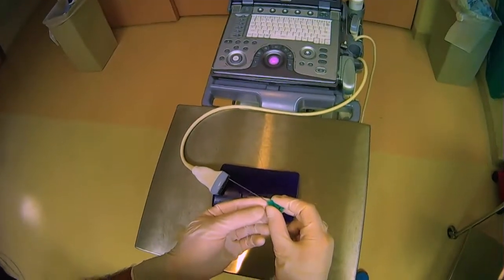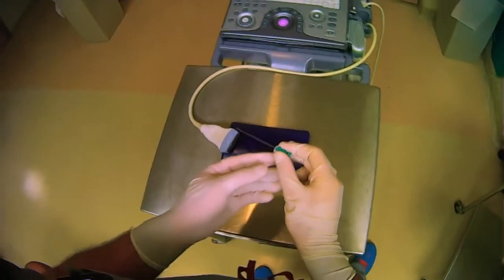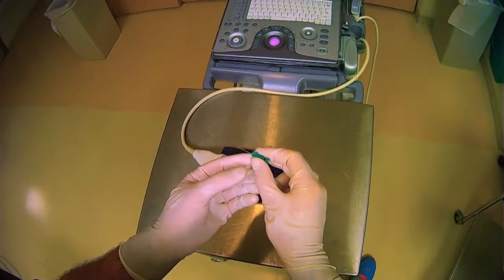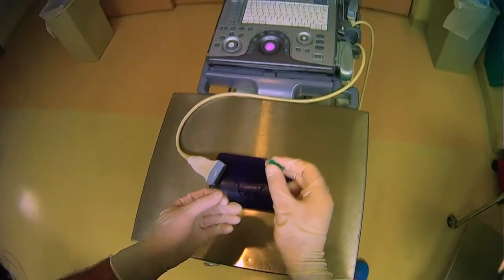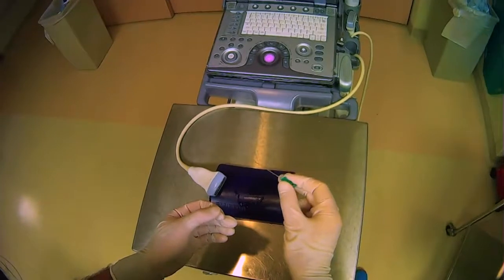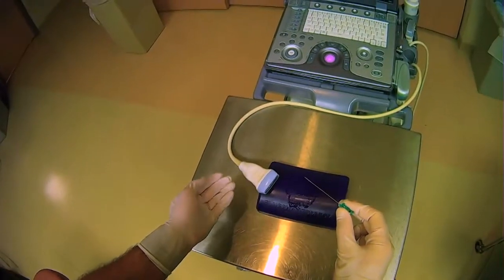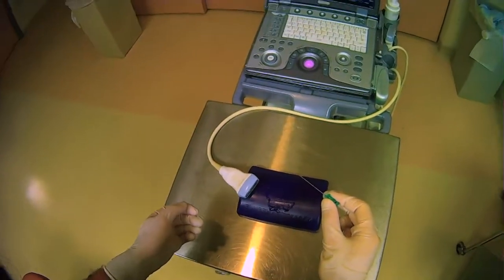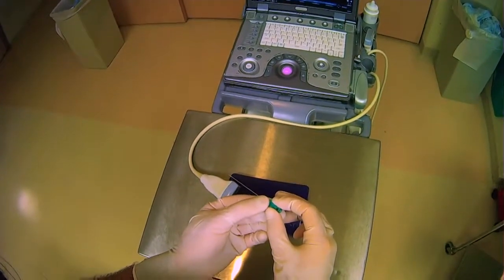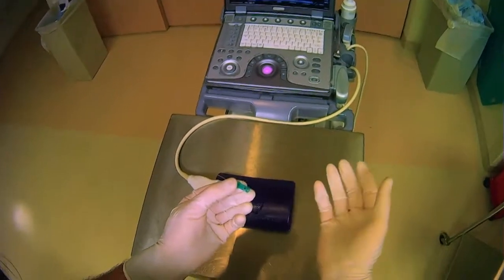We've talked a lot about the ultrasound machine, but also we want to take a quick moment and discuss the equipment that you're going to be handling in the other hand. Just like you had to be holding the ultrasound machine appropriately in a stable way, you also want to do the same with whatever you're holding in your other hand.